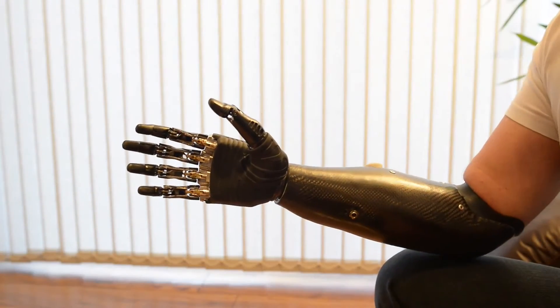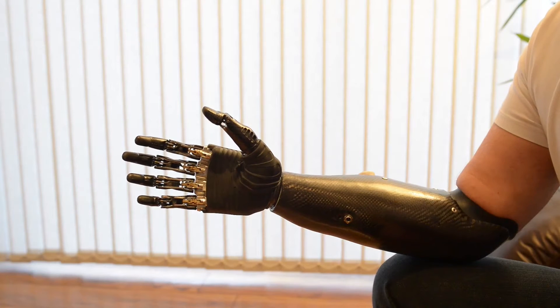As you can see, it's a really nice piece of equipment and I love it. This is the Be Bionic V3. This is key grip.